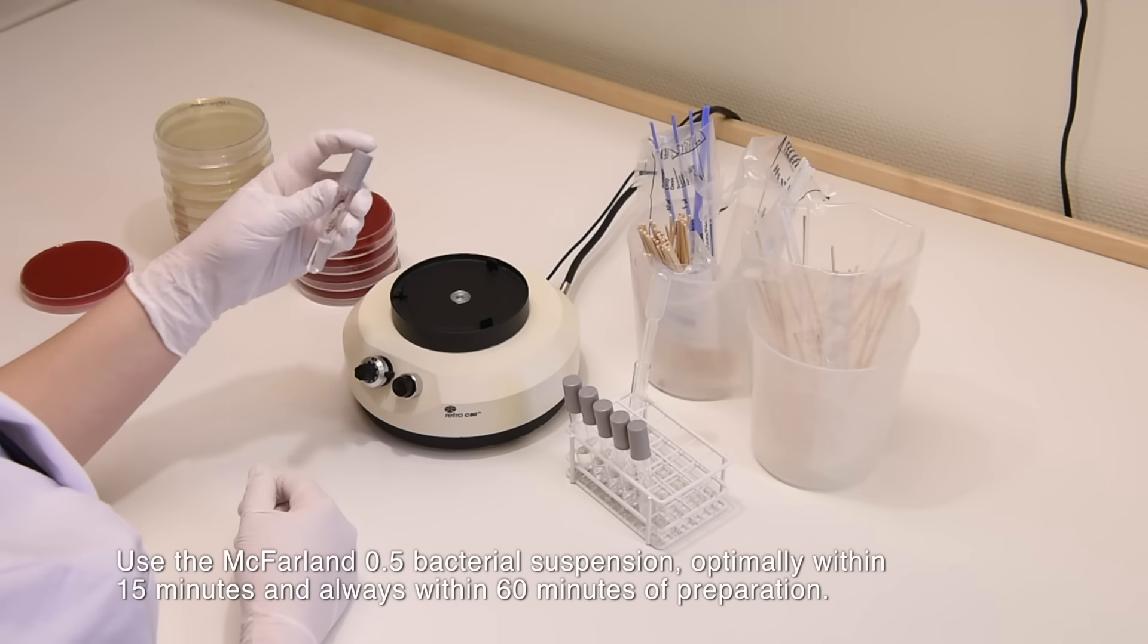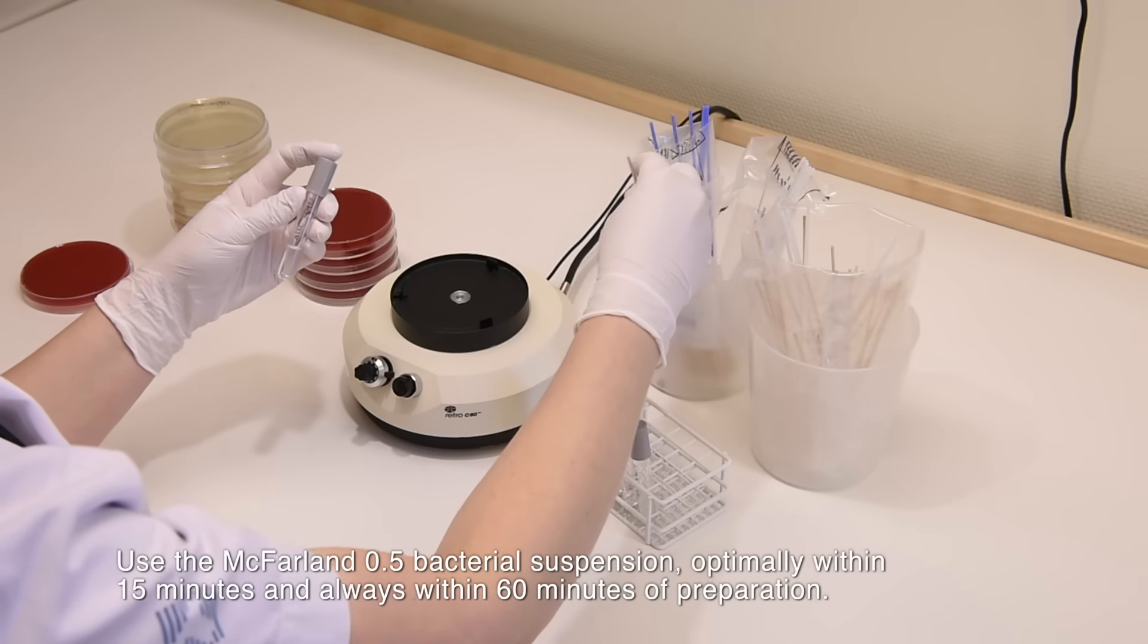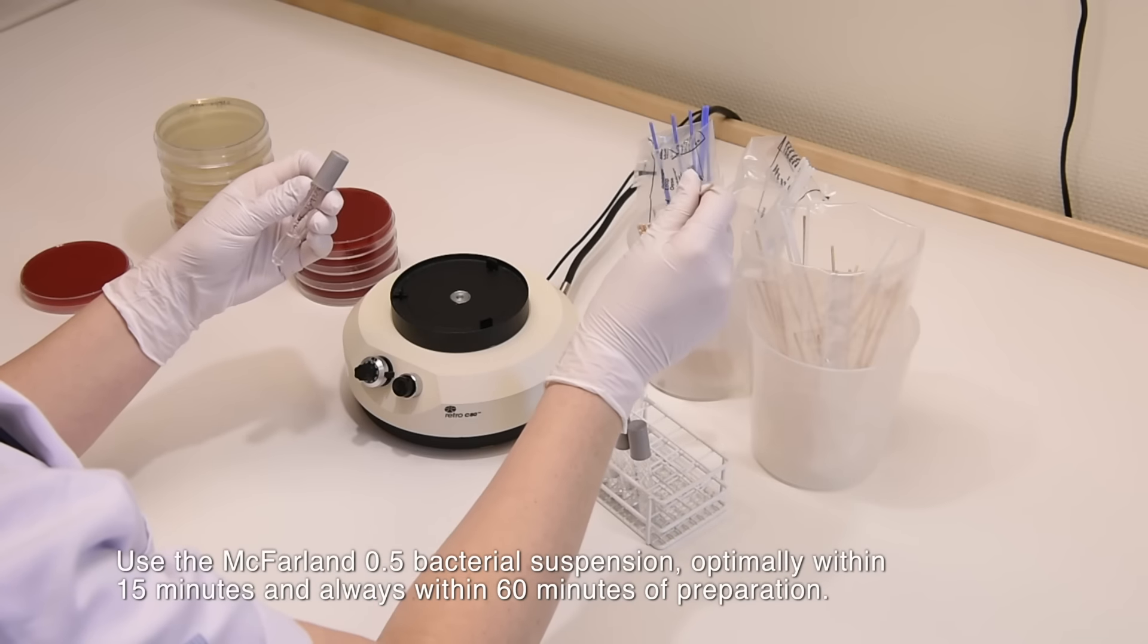Use the McFarland 0.5 bacterial suspension optimally within 15 minutes and always within 60 minutes of preparation.